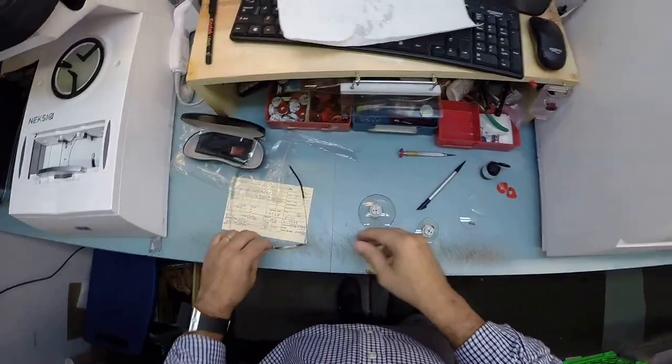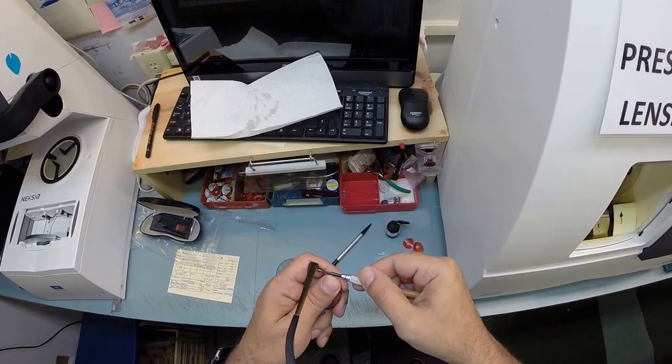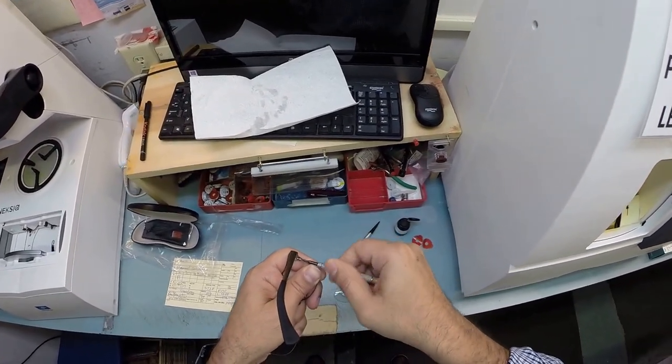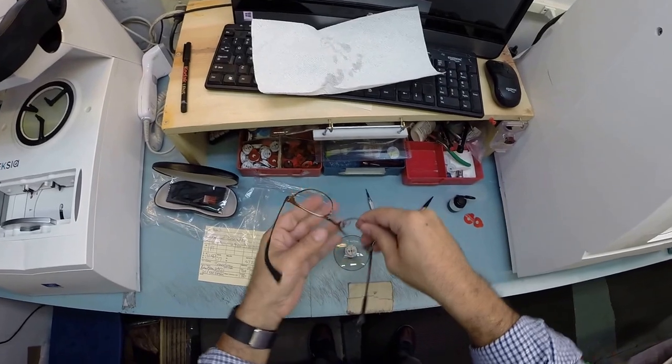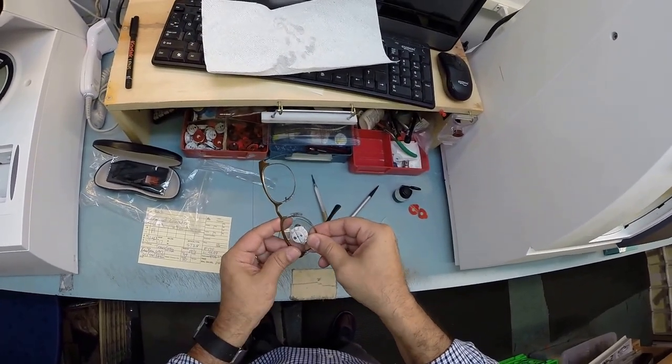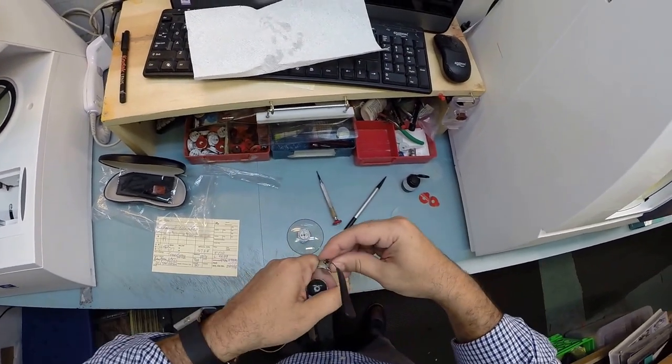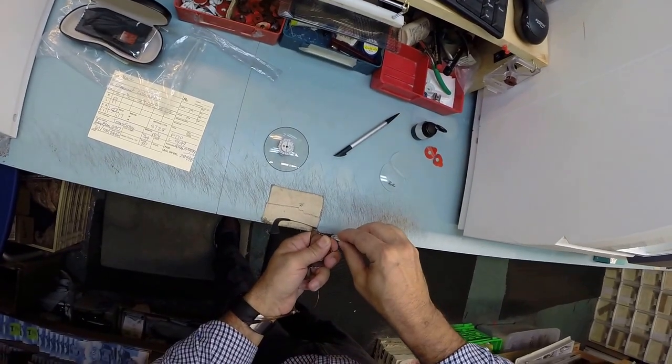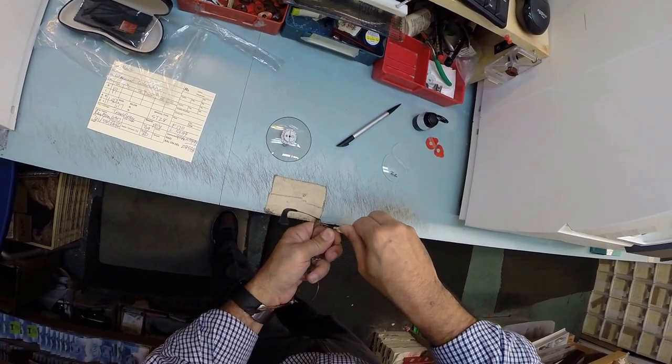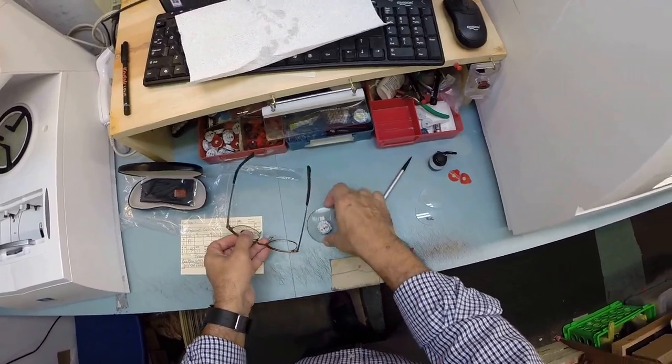Let's see I'm going to grab my screwdriver. I need a Phillips head screwdriver so I'm going to grab this one. I'm going to do a little bit of lefty loosey until the eye wire opens up. Turn this around. Let's go ahead and get the lens mounted in there. And I can go ahead and tighten the screw down. And we are good to go. So let's go ahead and do the same thing for the left.